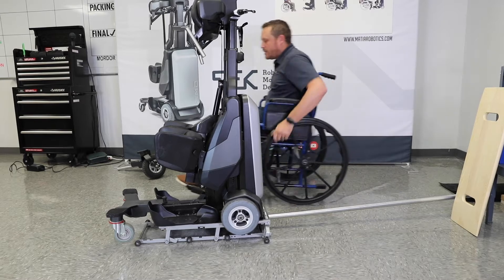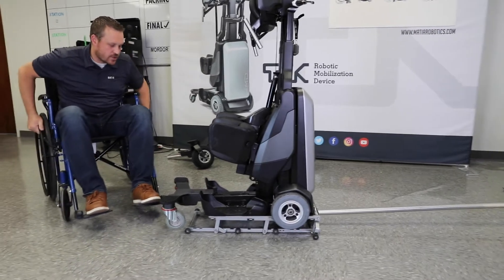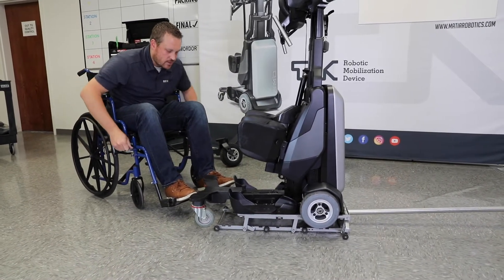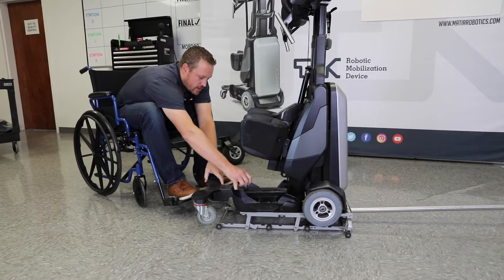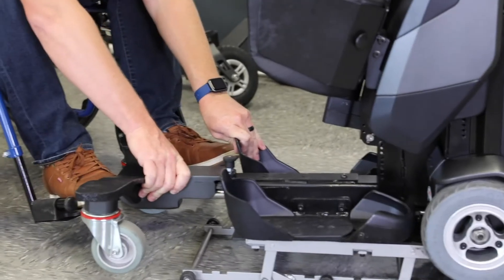The first thing I'm going to do is the tail piece here, and you're just going to change out the whole tail. That's done with this pin right here — you lift up and if you twist it'll lock up, and then I'm just going to slide that off.